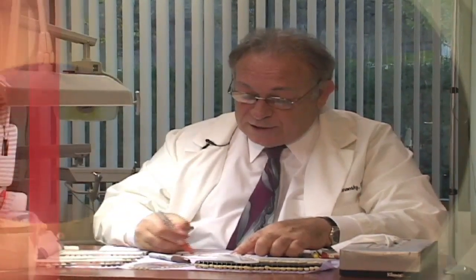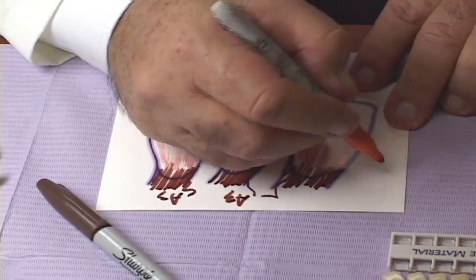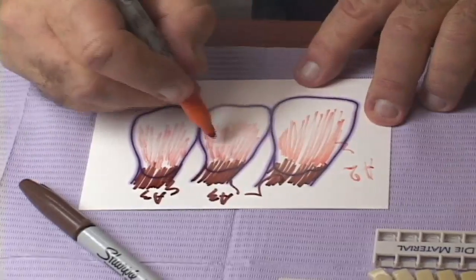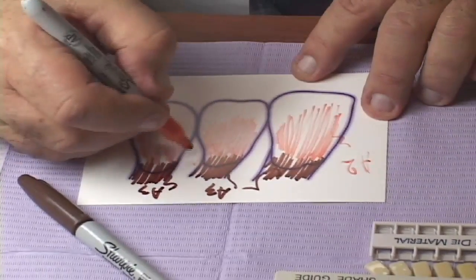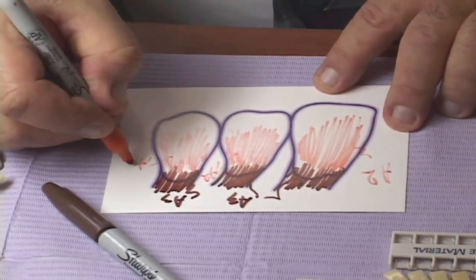As you can see, the orange is covering a portion of the area of the tooth. The dentin is A2, and the neck color is A3.